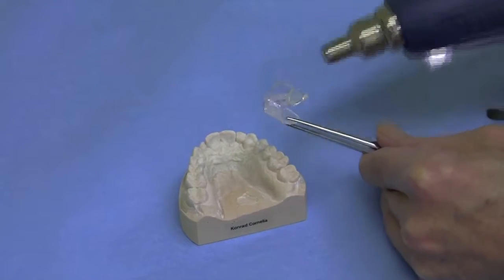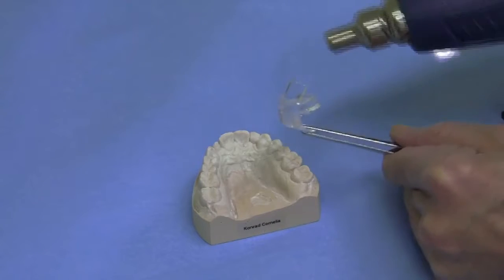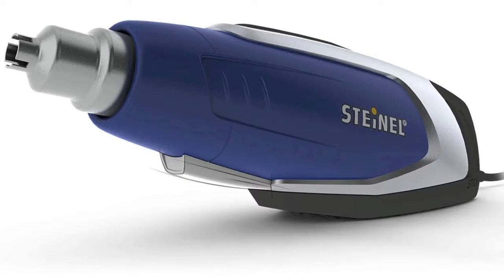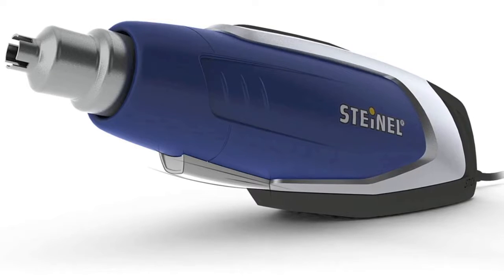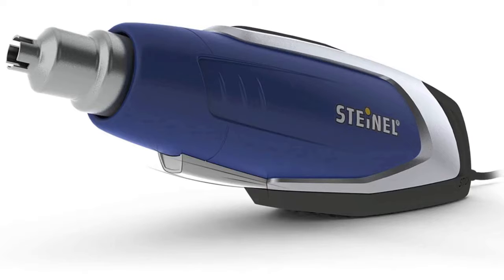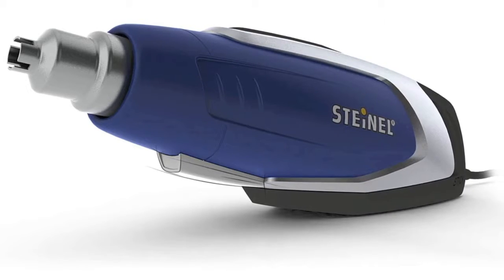Because of the low thermal conduction rate, the splint is heated slowly with a hot air gun to soften the polyester. For this, we use a small hot air gun from a hobby shop. The unit reaches temperatures of approximately 450 degrees with an 8 millimeter tip.